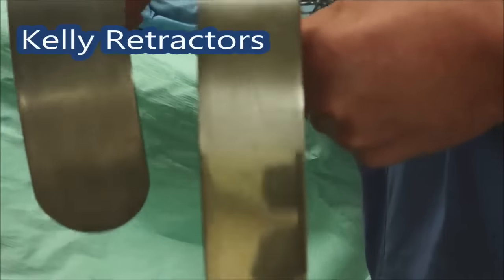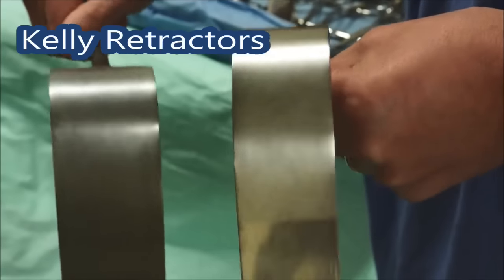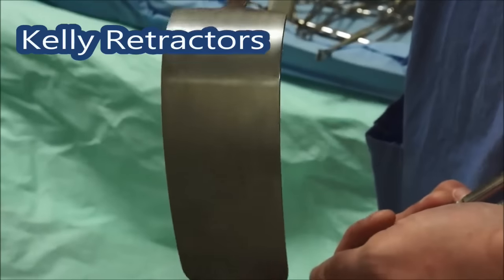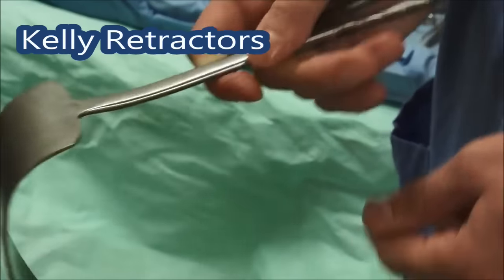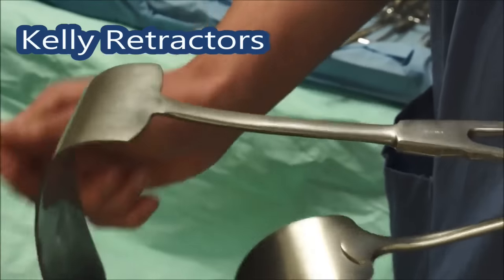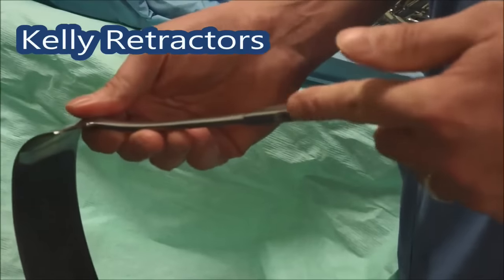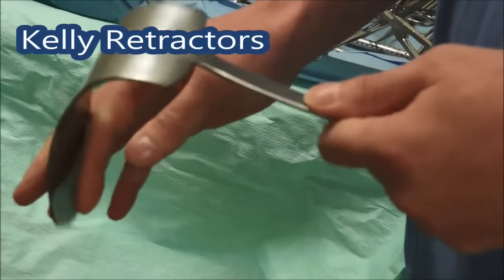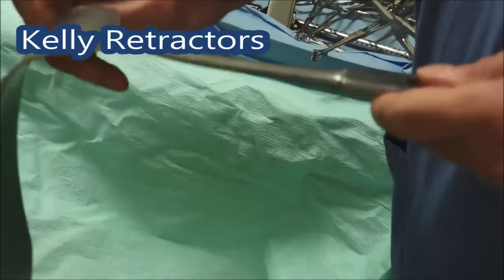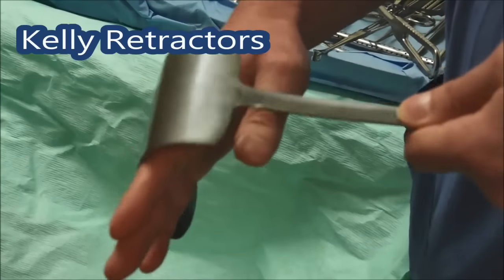In most of our patients having abdominal surgery — colorectal cancer in open surgery — I tend to use these retractors. They're again rounded to prevent trauma, though they all have quite sharp edges so be careful and don't dig them into anything soft like a liver or spleen. Again there's a little bit of grip on the handles. These are even deeper ones.